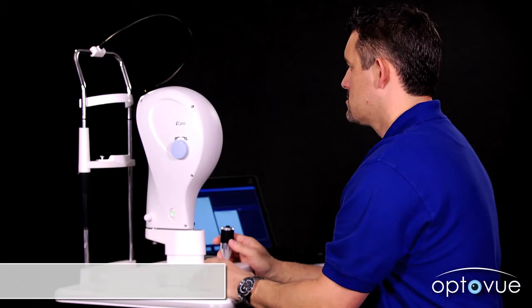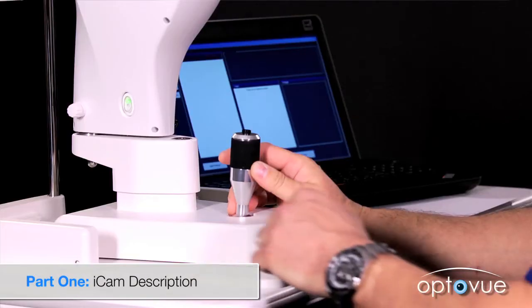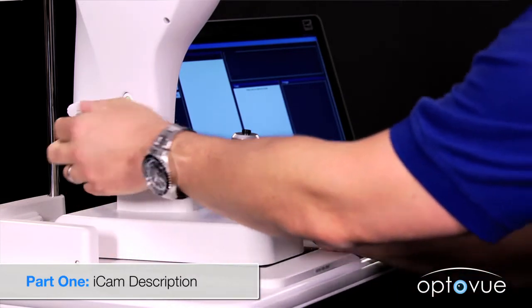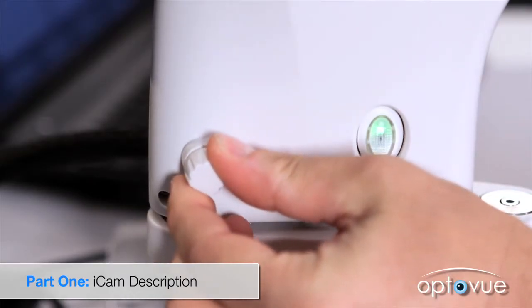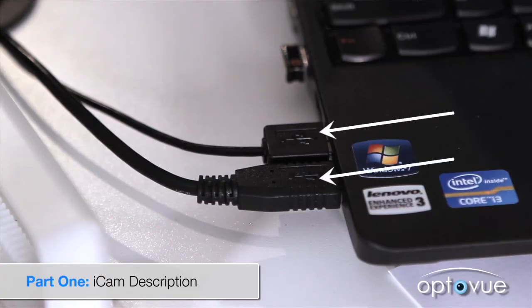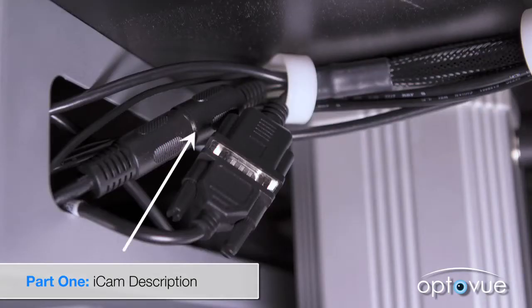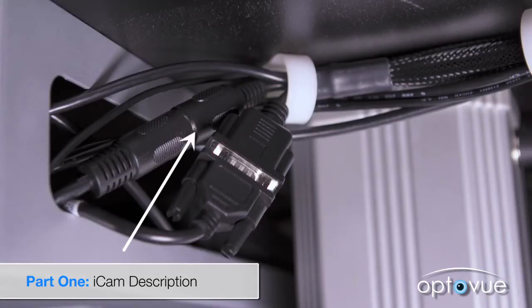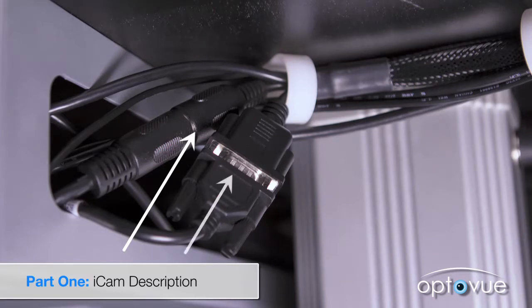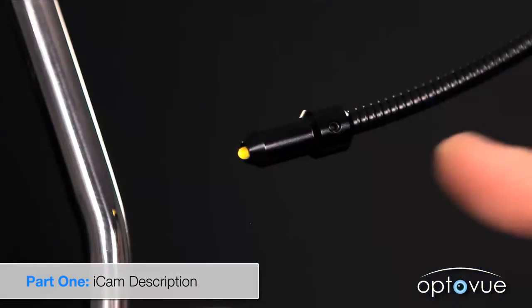The chin rest plate should be screwed securely to the table to prevent displacement. Once mounted, the locking screw on the iCam should be securely tightened. The iCam has four connections: two USB connected to the computer, one connection to the medical grade power supply which can be located in the bracket and plugged into the table column, and a final connection to the iBase cable which provides power for the external fixation.